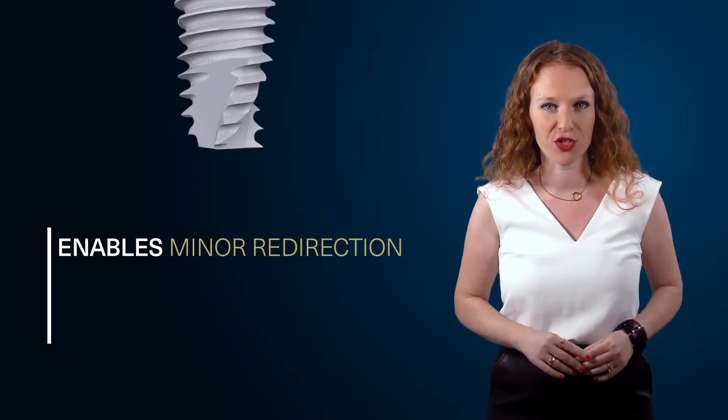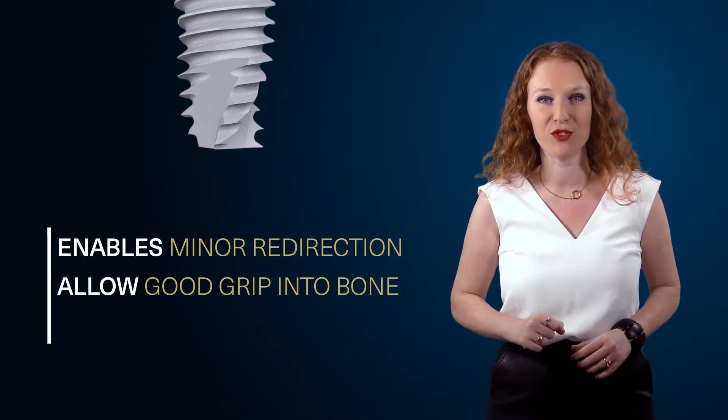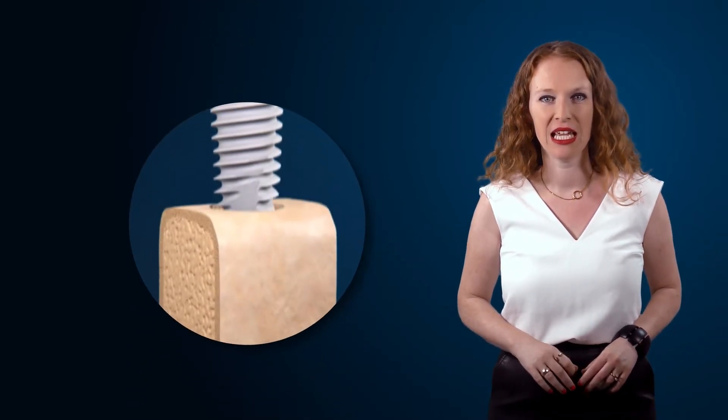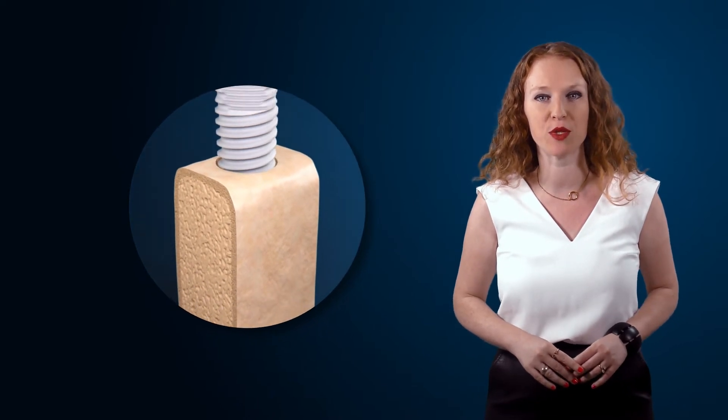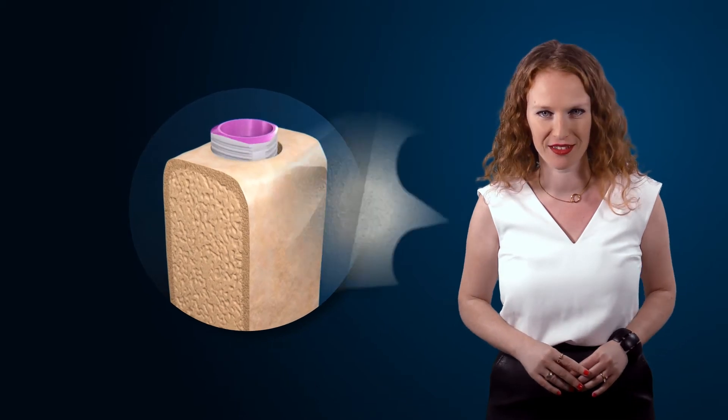This is the flat cutting apex of the V3. It enables minor redirection during insertion and is designed to allow good grip into bone and to promote initial stability. It also gives us an advantage for immediate placement procedures by penetrating the cortical walls of the socket, and it's also self-tapping.